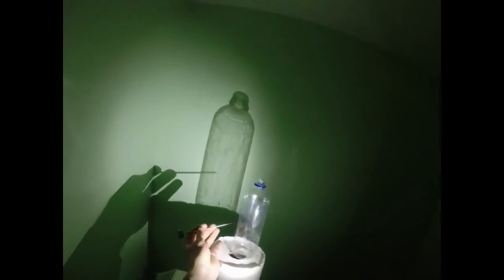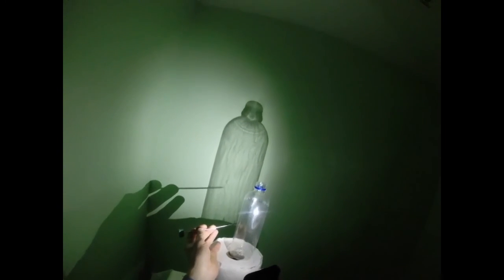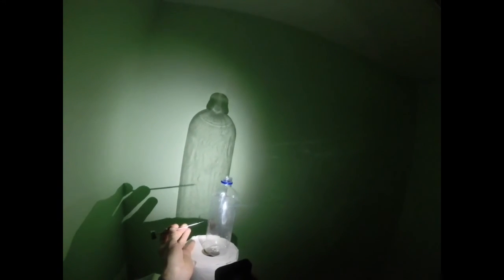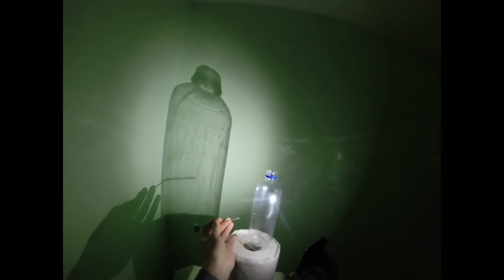With situation number three, when my needle bypasses the midline and rotating the light source moves the needle hub but not the needle tip, I can see my needle deep both with lateral and oblique view. But is it a true contralateral oblique view? The answer is no. To get a true contralateral oblique view, I have to go to the opposite side — and in that case, I can see my needle tip touching the edge of the shadow.